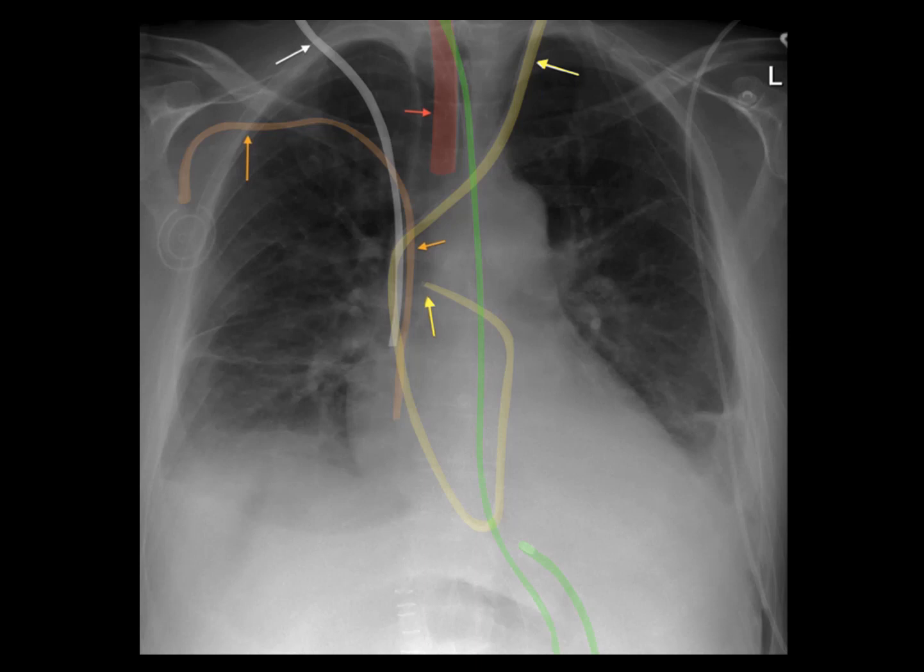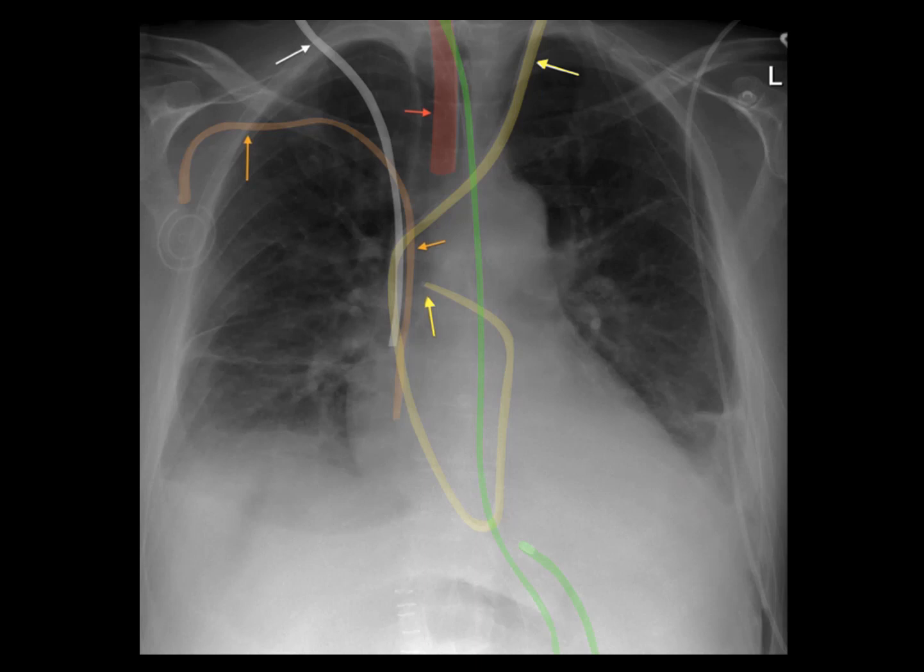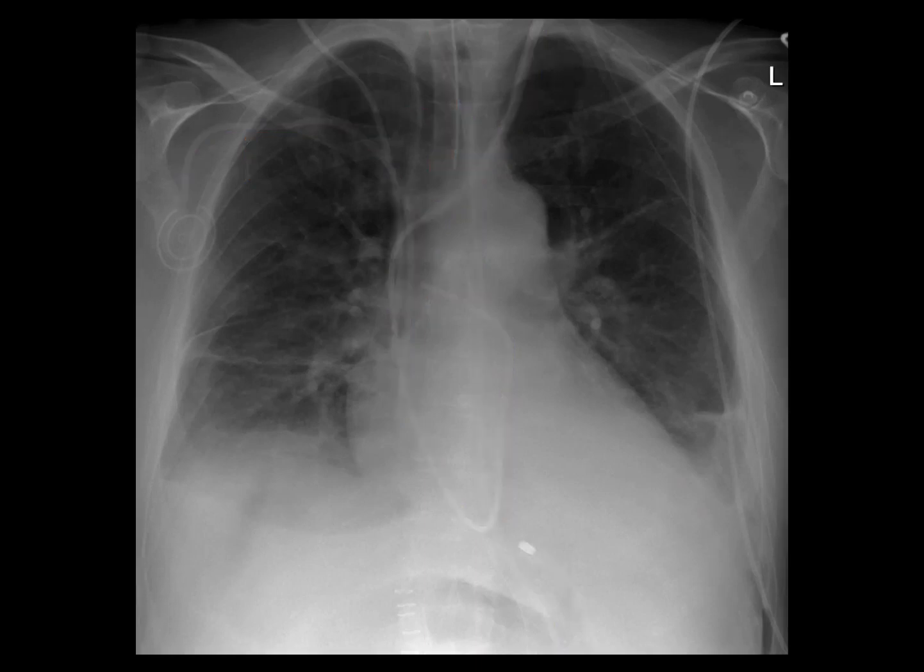Hello, David Nassine with a rundown of lines and tubes on chest x-rays using multiple images available on the web. Here's the image with all of the annotations removed. We'll discuss each line in turn.